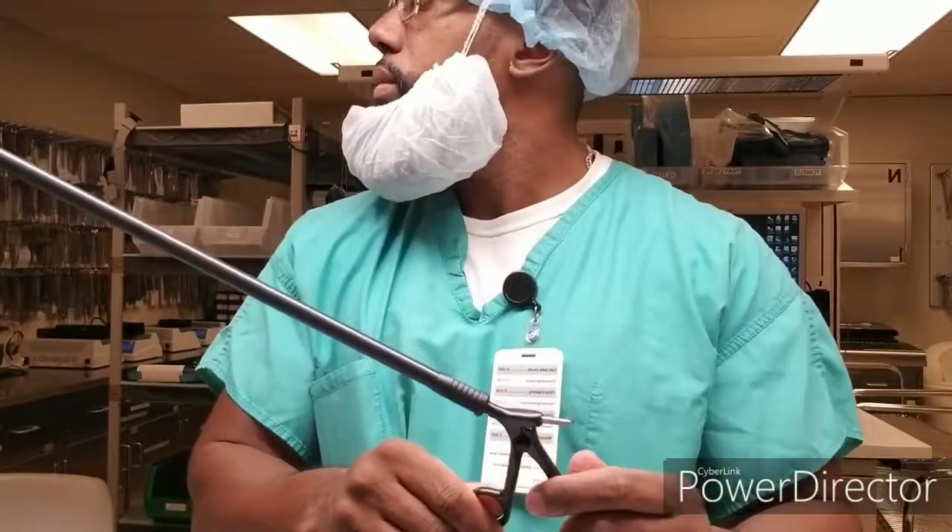And the handle. Let me mention there are different laparoscopic handles — these are the throwback ones — and that piece at the end is very important as well, and you will see why. Now let's get into the testing part.